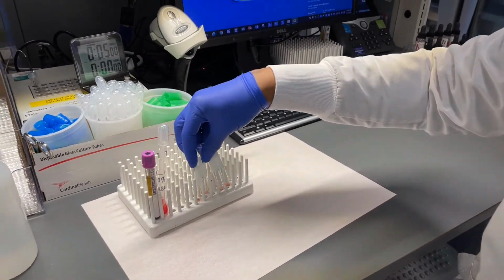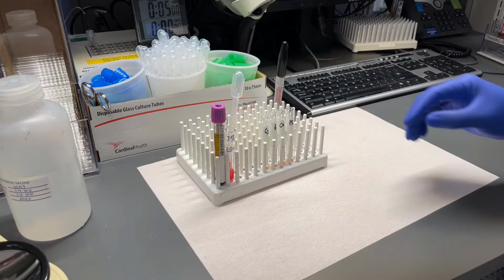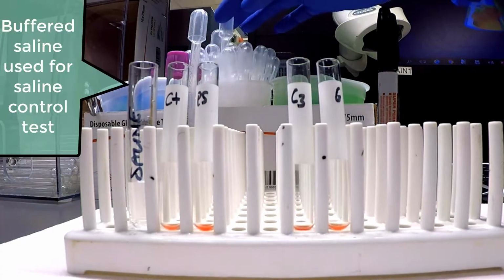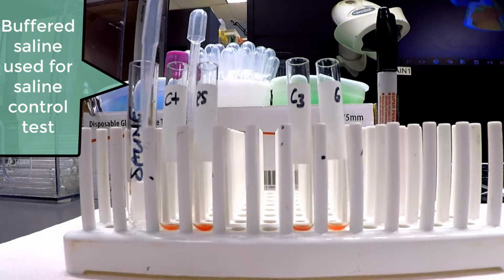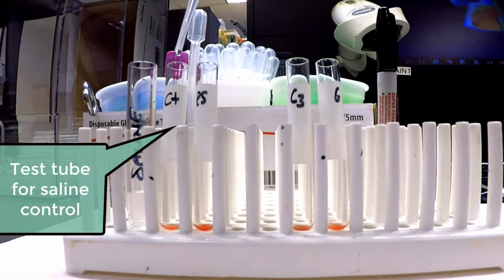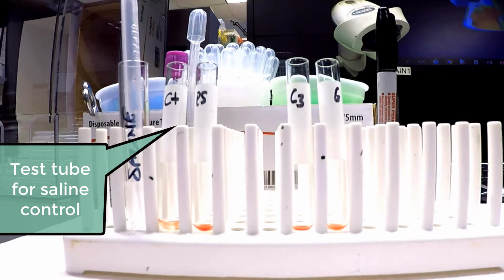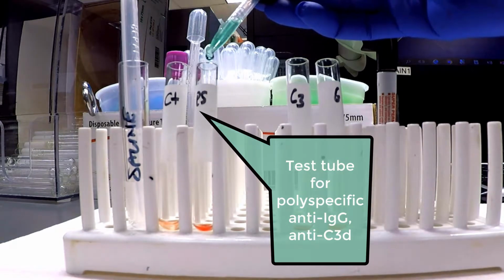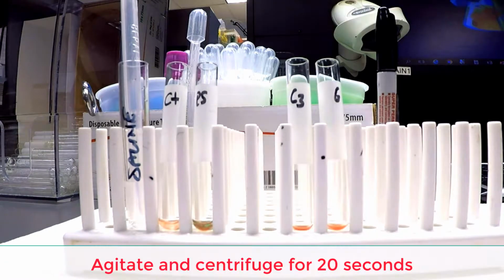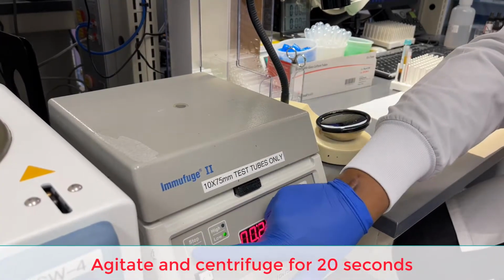The patient's red cells should be dry, meaning that little to no residual saline is to remain inside each tube prior to adding the appropriate reagent. We will begin the DAT with the control and the polyspecific tubes labeled CT and PS respectively. 2 drops of buffered saline are added to the control tube, while 2 drops of polyspecific IgG and complement reagent are added to the thus labeled tube.